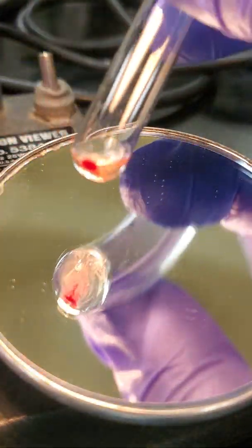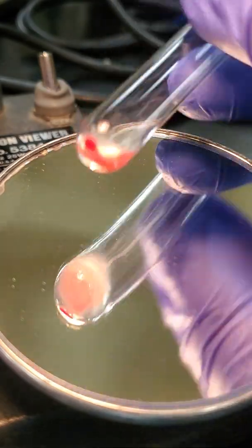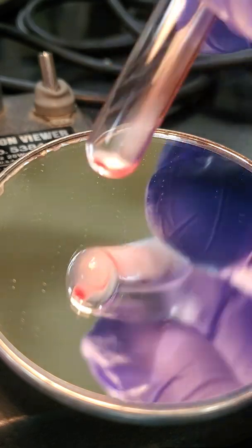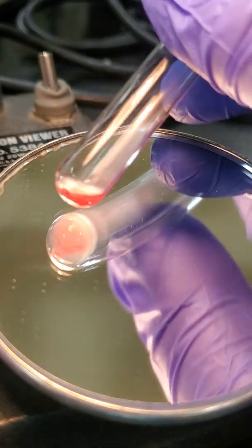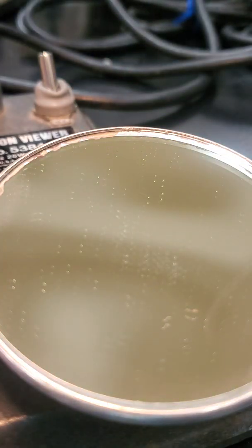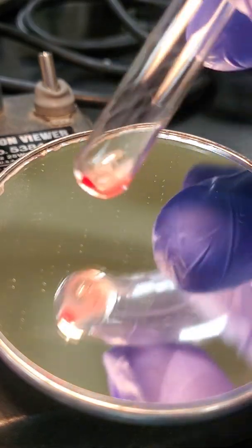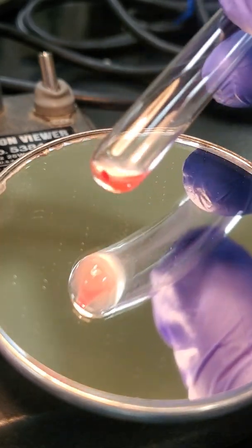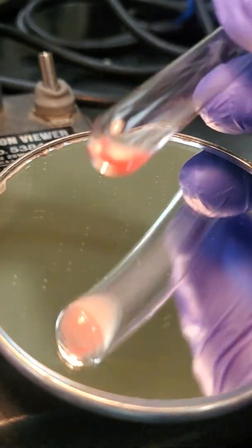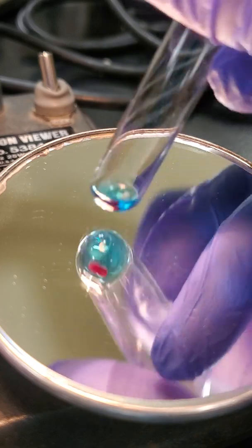Reverse typing for unknown number 6, A cell, and our B cell.